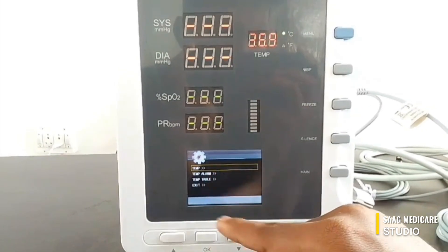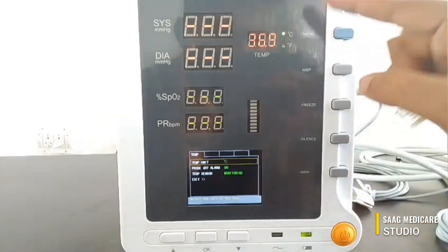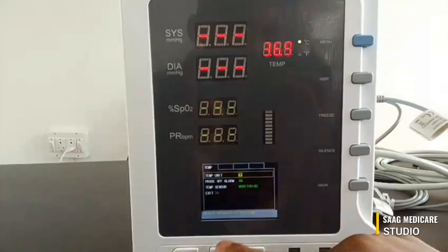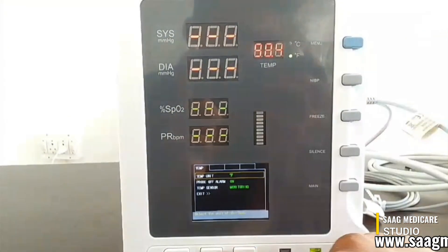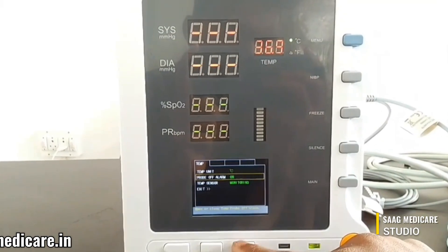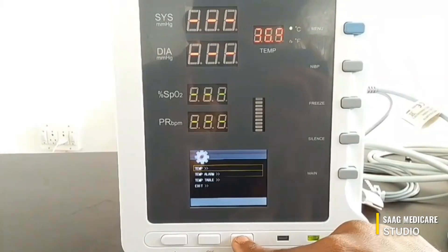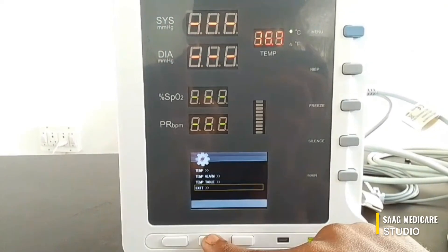And for temperature settings, you can change the unit between Celsius and Fahrenheit. You can see if you change to Fahrenheit the green indicator moves. You can also turn the probe alarm of the temperature sensor on and off, view temperature alarms, and view the temperature table.